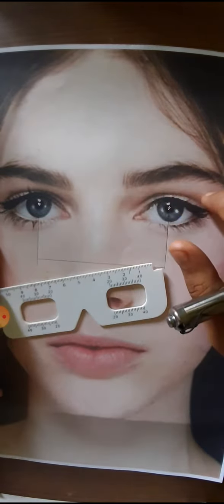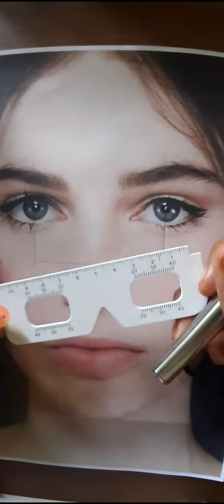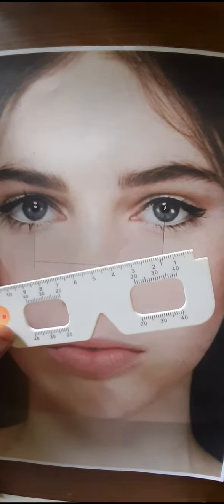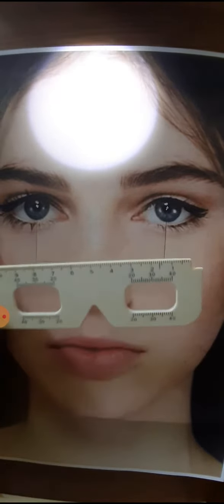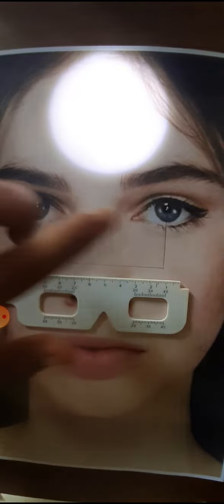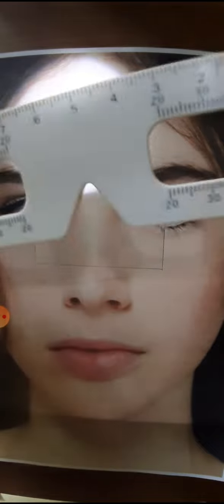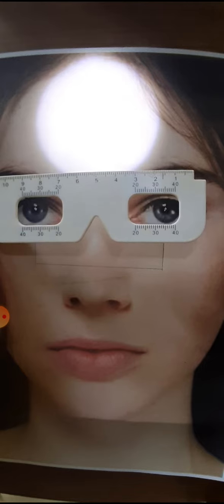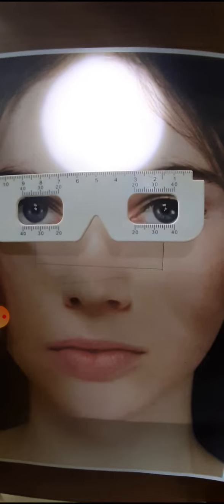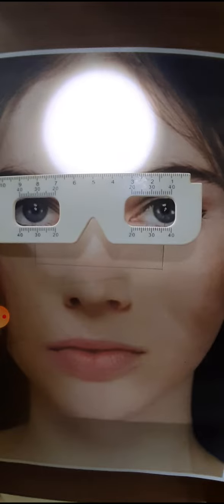To measure interpupillary distance, I am taking this demo face. We need a pen light and a PD ruler — we can also use a normal centimeter ruler. First, we will shine the illumination of the pen light on the forehead and observe two light reflexes seen in the center of each pupil. We then place the PD ruler over the nose so the eyes are aligned in the ruler.